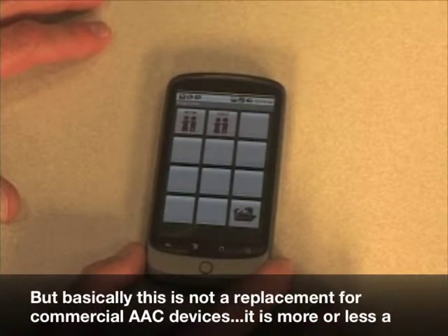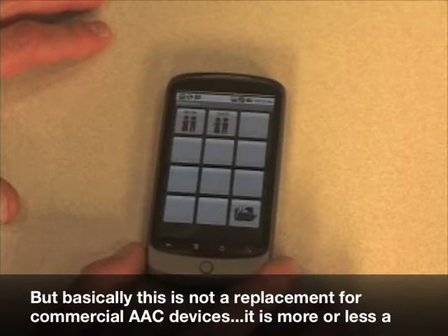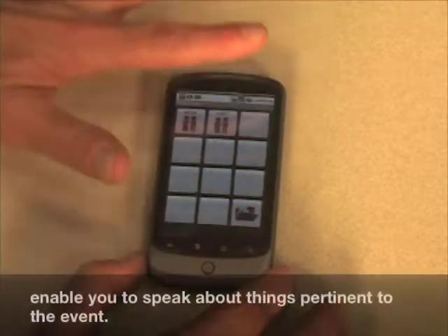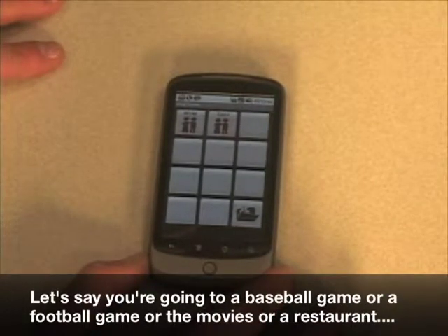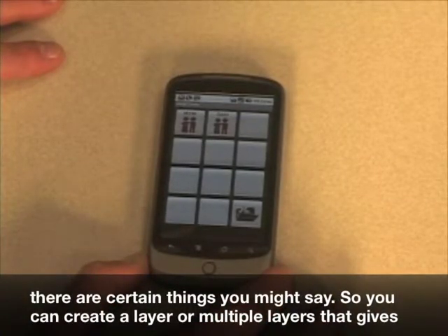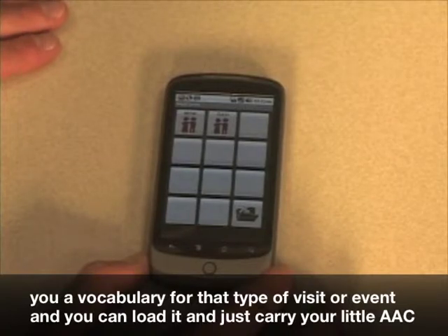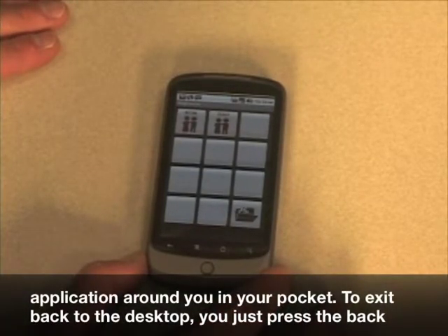Basically, this is not a replacement for commercial AAC devices. It is more or less a little personal AAC application you can take with you for specific events — create buttons that enable you to speak about things pertinent to the event. Let's say you're going to a baseball game, a football game, the movies, or a restaurant. You can create a layer or multiple layers that gives you a vocabulary for that type of visit or event, and you can load it and just carry your little AAC application around in your pocket.